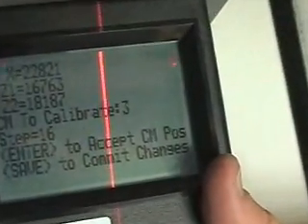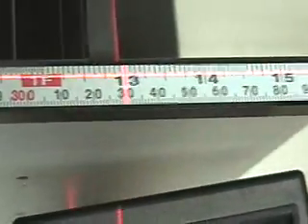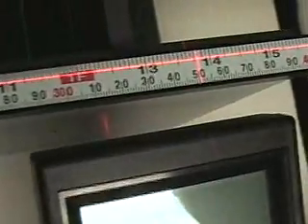Press the up arrow to go to the next centimeter, then hit enter. Same process all the way through — you're going from zero all the way to the edge of the ruler, which is positive 30. You can just hit the up arrow, which selects positive centimeters, and walk it to where you need to move it, then hit enter. Because if you don't hit enter, it defaults back to where it originally was. Then just keep repeating the same process all the way through to the edge of the ruler.